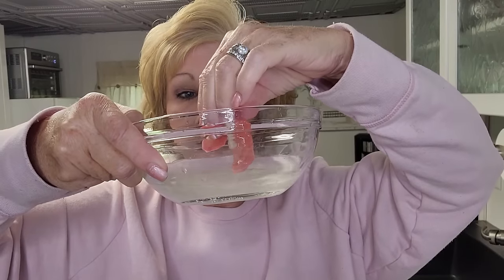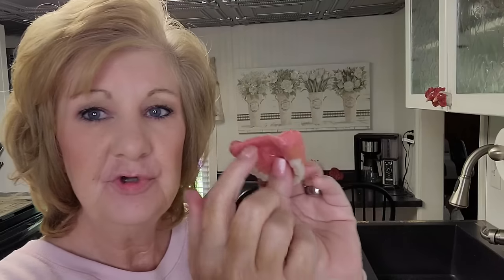This back bottom was going back very far and making me gag. So I stuck just the tip of the back in the hot water, and then I was able to take my little scissors and snip off some material. Put it back in my mouth, reformed it a little back there. So that's one tip: if you think you're gagging because it went back too far, then put just the little back end in the hot water until it gets soft, get your little scissors and trim little slivers at a time, put it back in your mouth. That's the easiest way because once this cures you can't cut it.